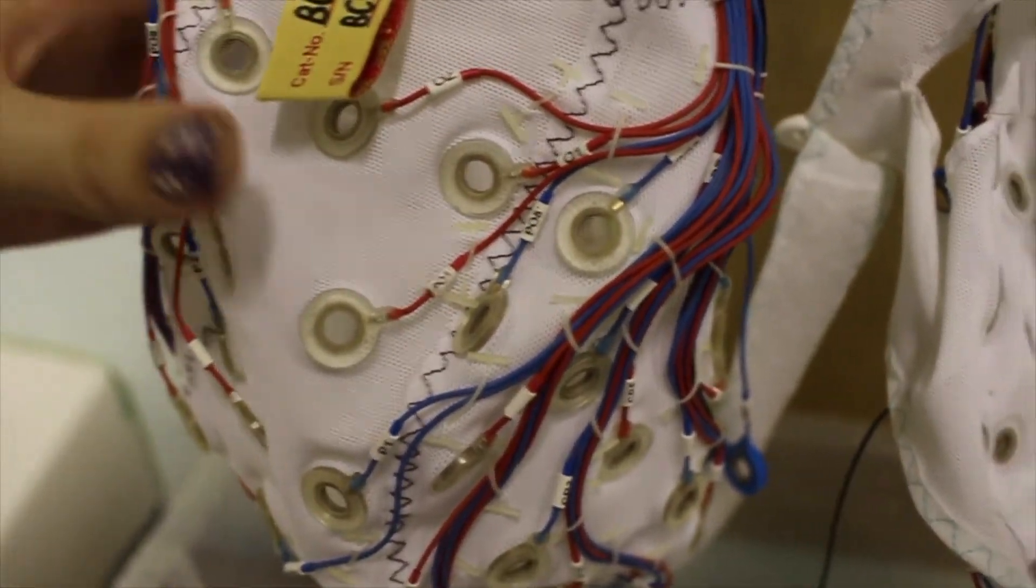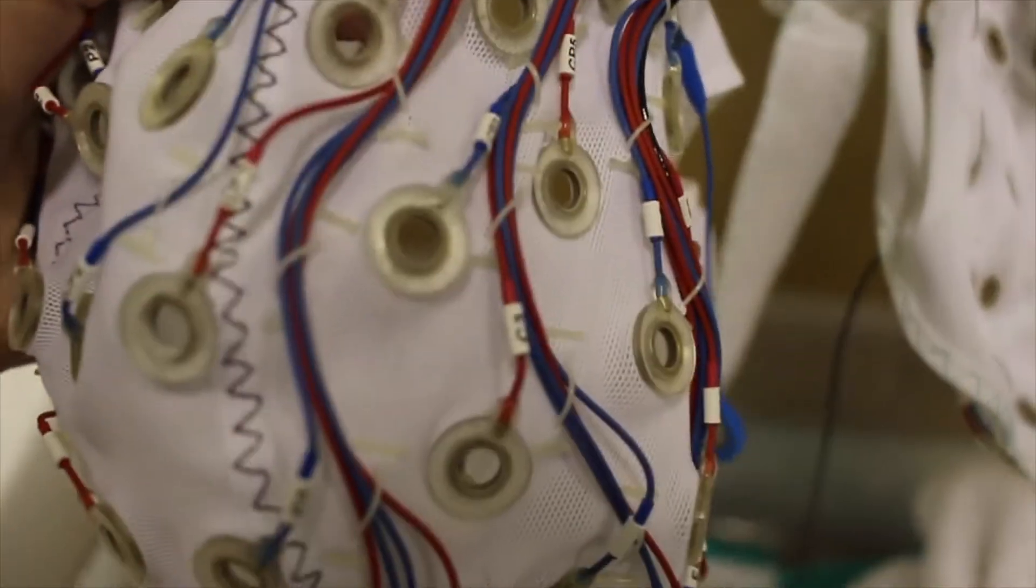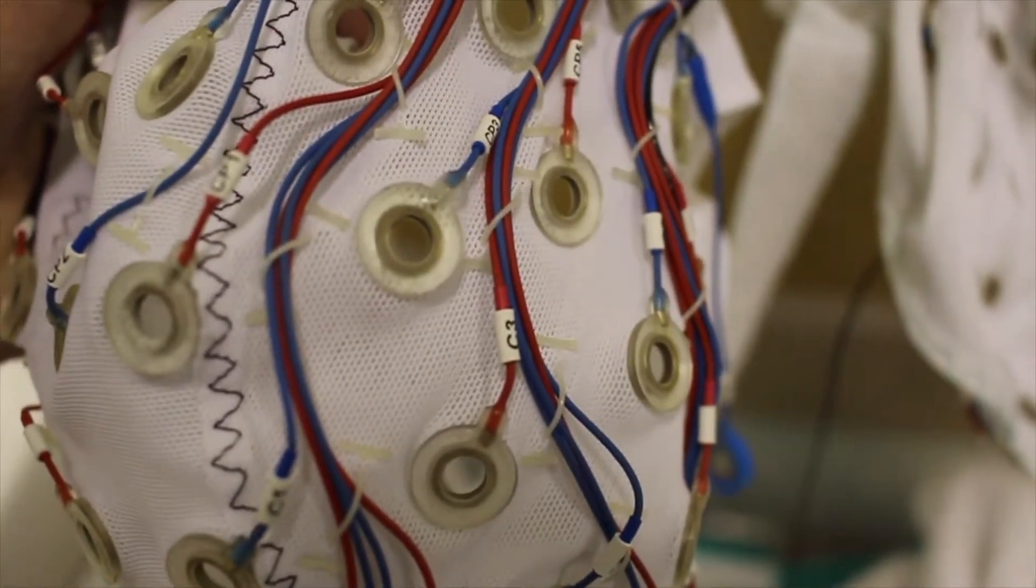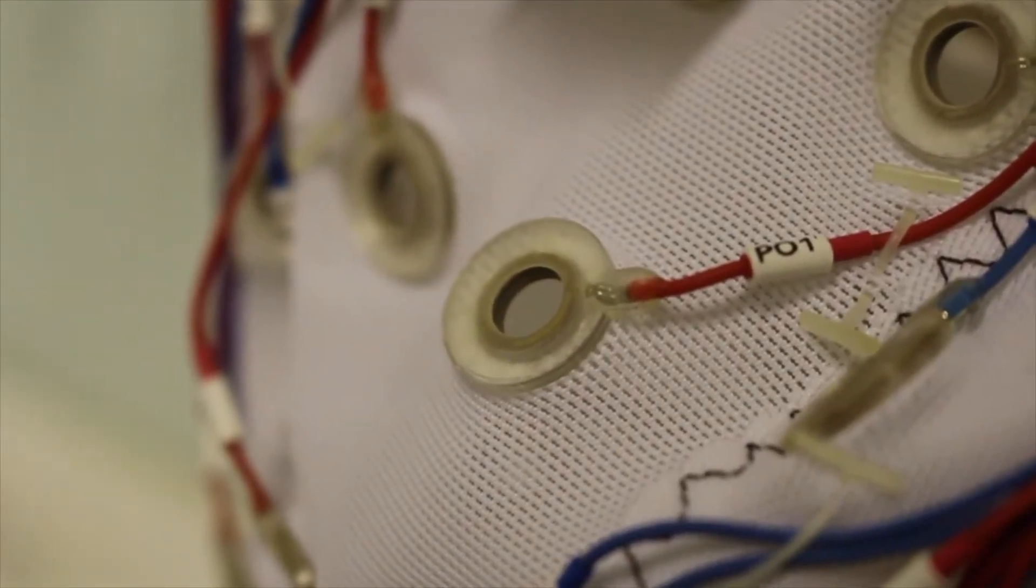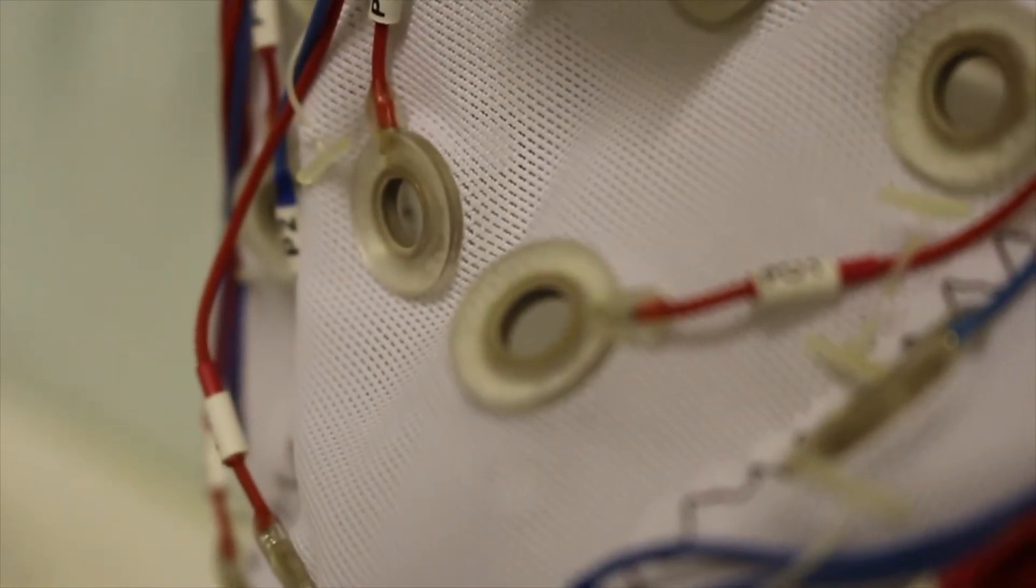You should make sure that the cap that you are about to use is clean, with no gel left inside any of the electrodes, and that it is completely dry. Do not use the cap if it is wet or damp.